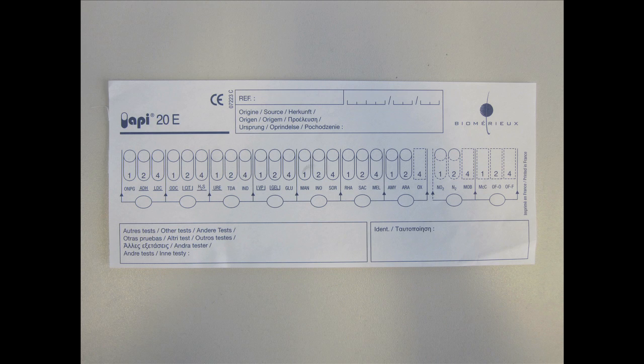The results, in the form of positive and negative for each separate reaction, are recorded on the result sheet provided by the manufacturer. There is a place for the oxidase test to be recorded.